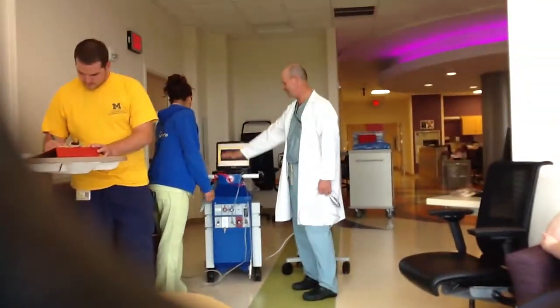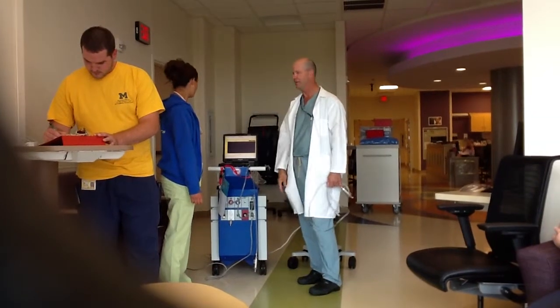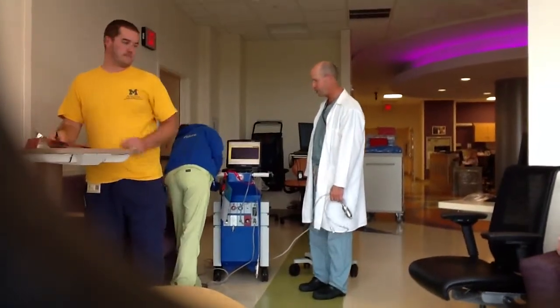So we'll say this thing's alarming. You look at the pump, it's not pumping, or it's not filling and emptying. And you're going to change to your hand pump.